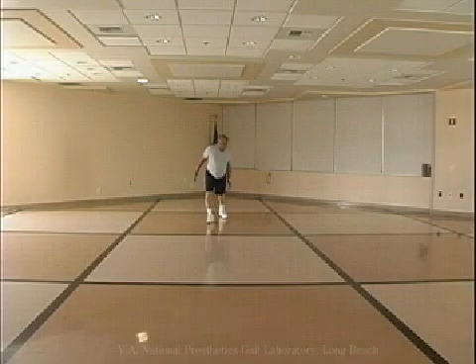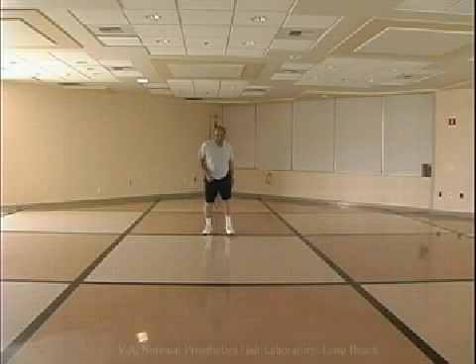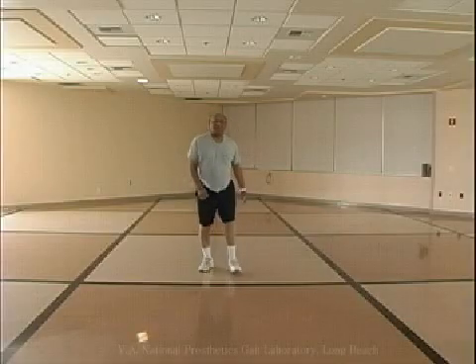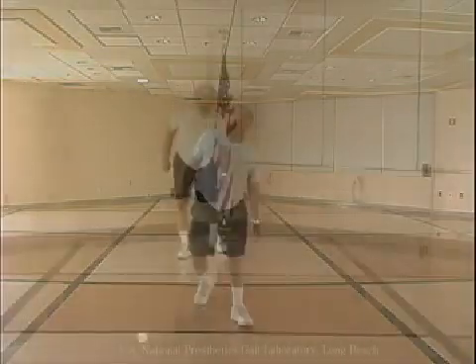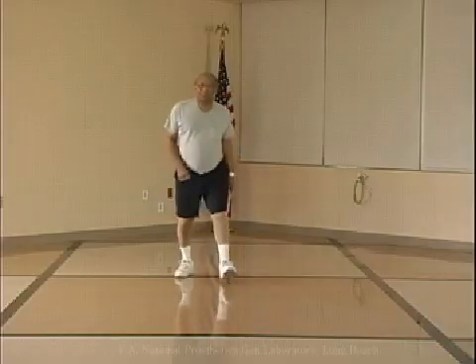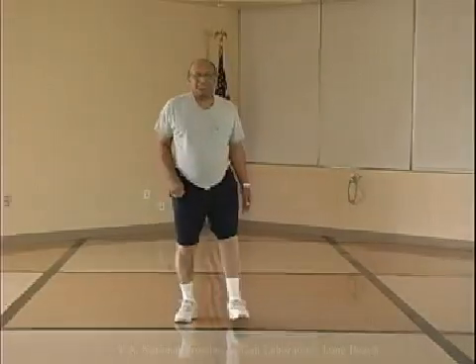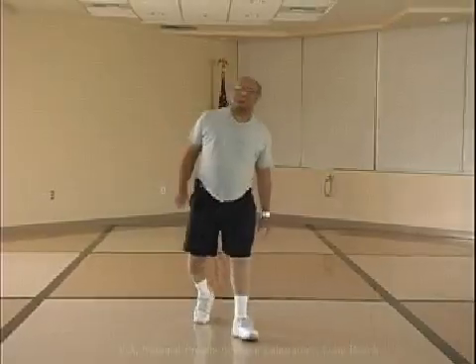Insufficient length of the prosthesis may also cause the individual to lean toward the prosthetic side. If the socket is abducted, often in conjunction with a residual limb which is relatively short, lateral trunk bending may occur.